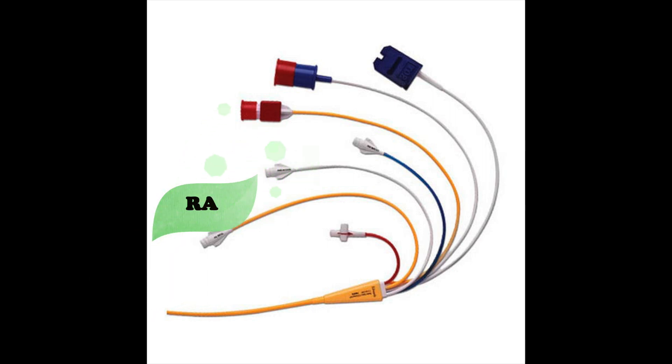The white port is positioned in the right atrium. It is used for administration of IV fluids or venous blood sampling.